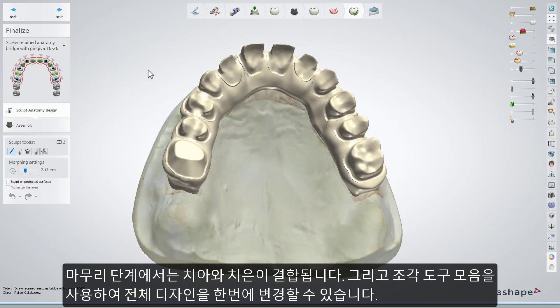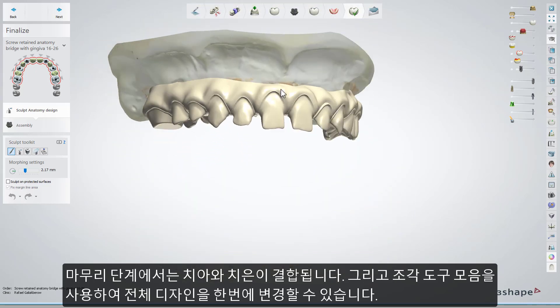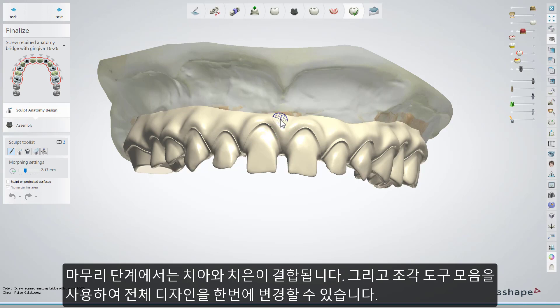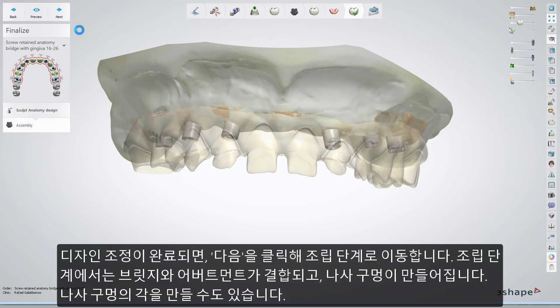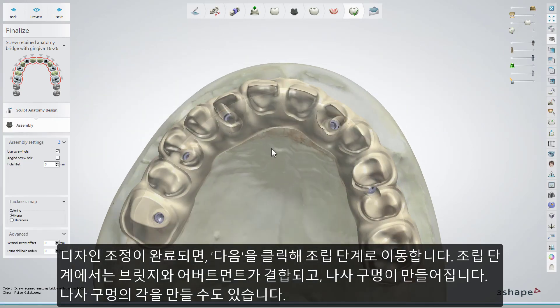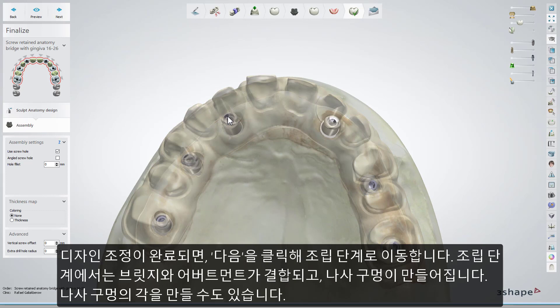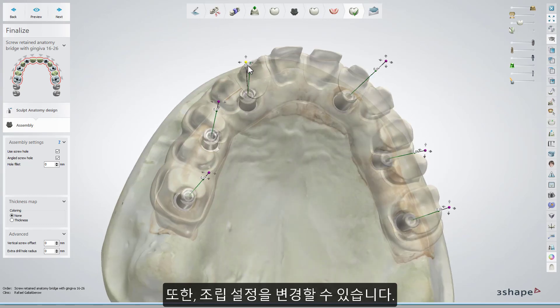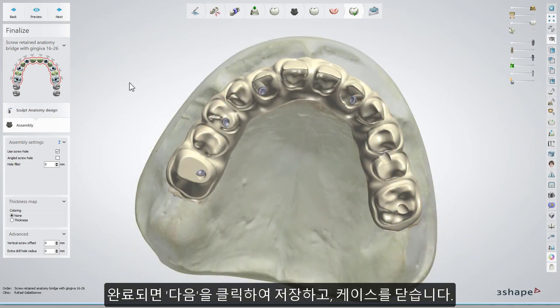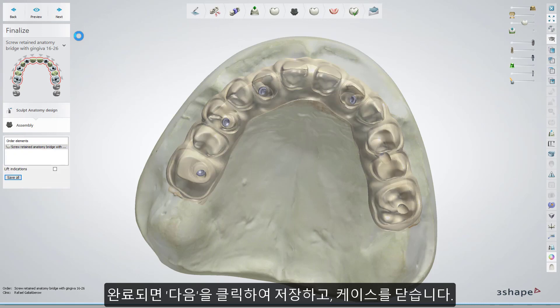At the Finalize step, the teeth and gingiva are combined, giving you the chance to adjust the whole design at the same time. Use the Sculpt toolkit tools to do that. Once the modification of your design is finished, go to the Assembly step by clicking Next, where the bridge and the abutments will be combined and screw holes will be created. Angulation of the screw holes is possible at this step. You can also modify the Assembly settings here. When ready, click Next and go to the Save step and close the case.